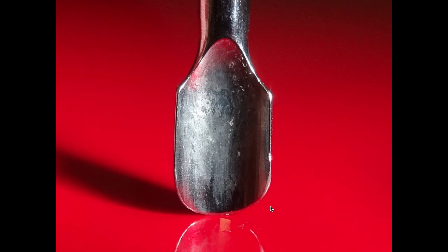As you've seen with the video, it doesn't take many passes at all to sharpen those instruments. You can do them within 10 seconds, even less than that in some cases. So it doesn't take a considerable amount of time while you're doing the procedure. The technician can do that while the veterinarian is between instruments and doing the procedures. That's a rundown on veterinary dental instrument sharpening. These are the three most common instruments that we use in periodontal therapy and extractions.